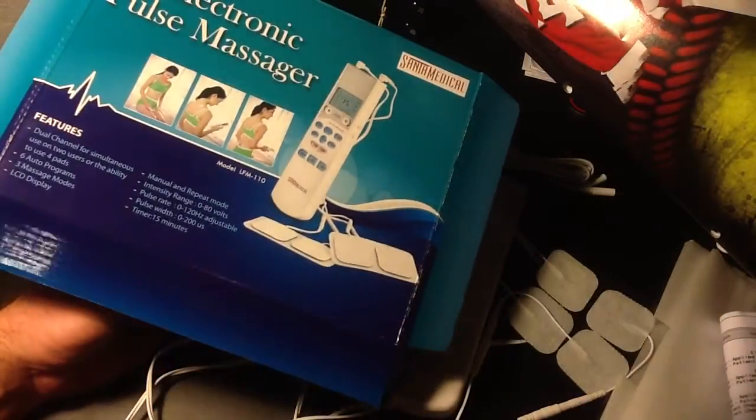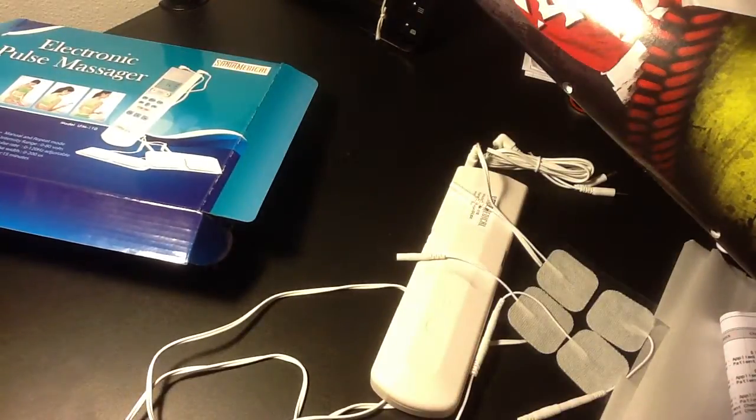Review the LFM 110 TENS Unit Electric Pulse Massager.